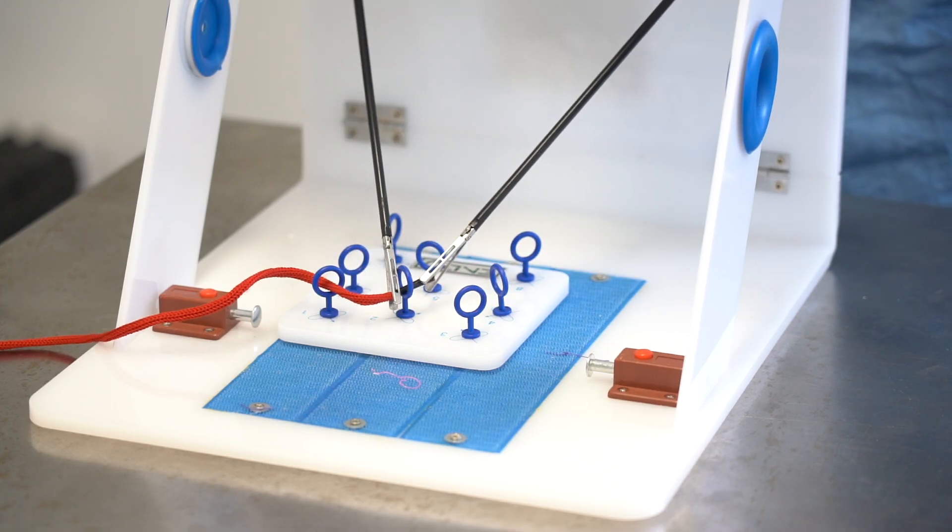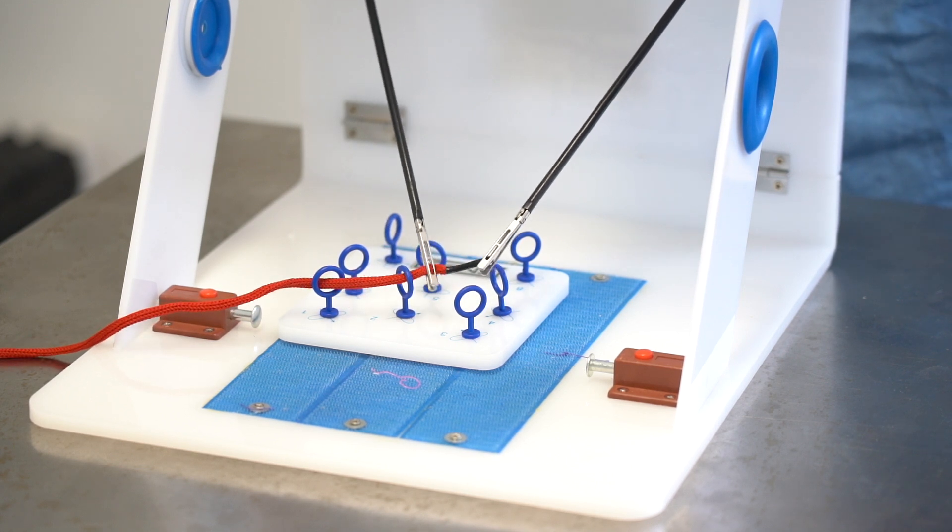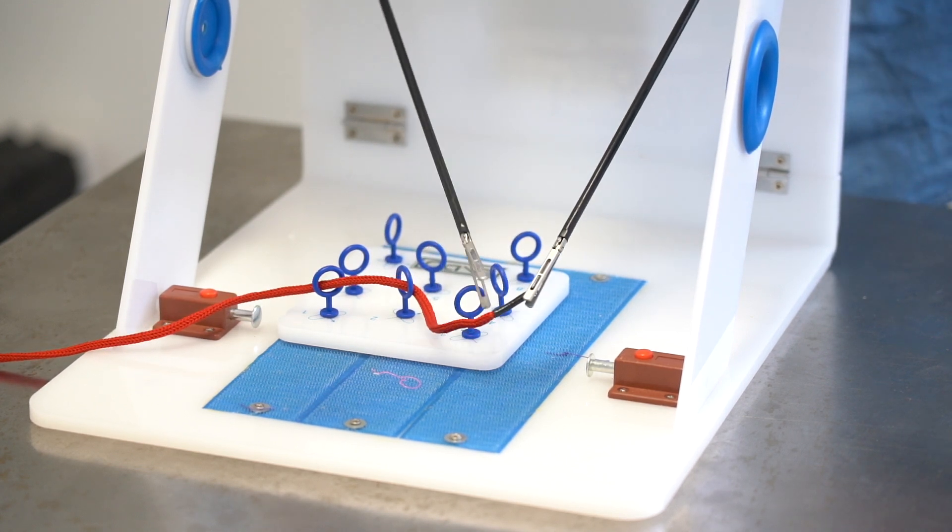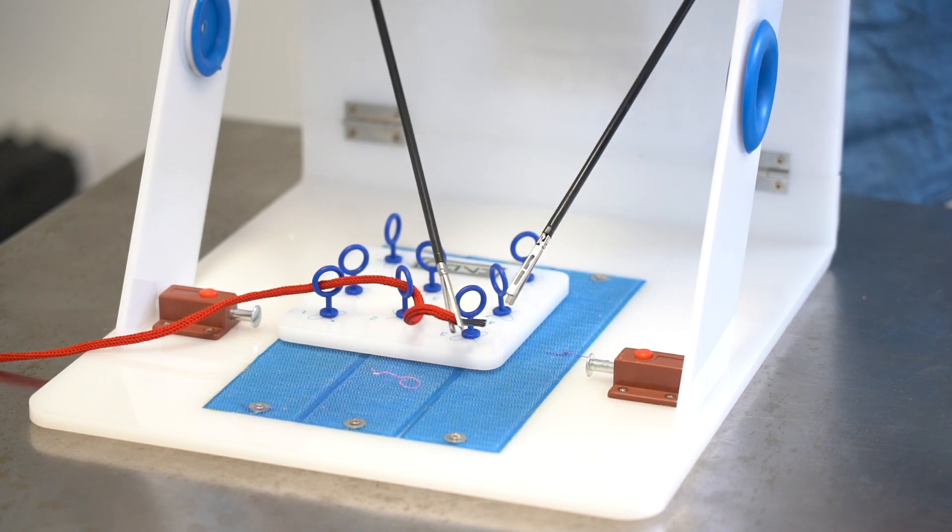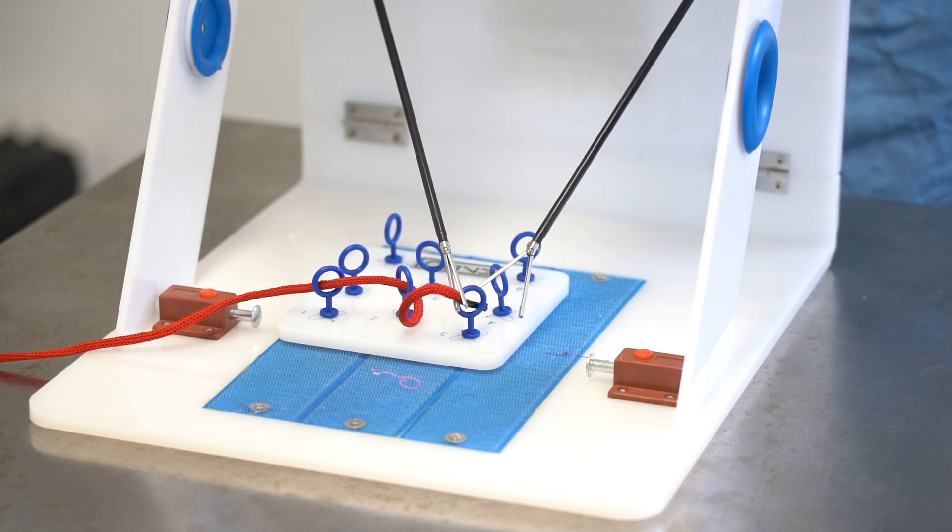Initial training should be about attempting to get some dexterity moving with the instruments and recognizing how the movements outside the abdomen are reversed compared to those on the inside of the abdomen.